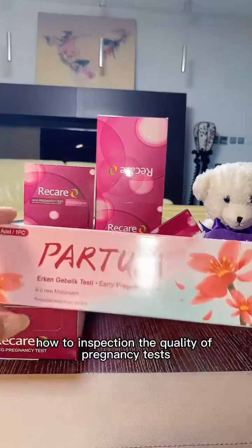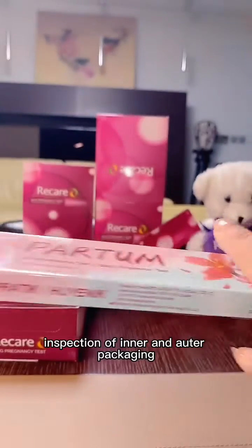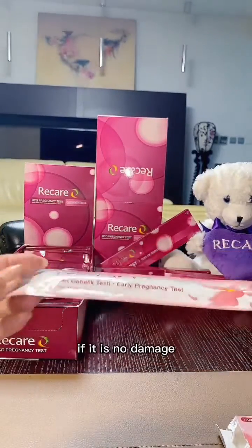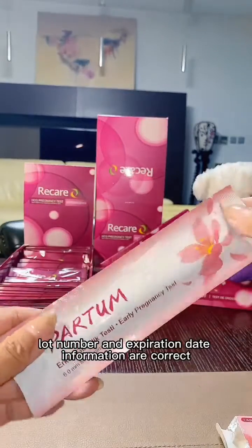How to check the quality of a pregnancy test. Step 1. Appearance inspection of inner and outer packaging. Look directly to see if the package is complete. Check that there is no damage, and that the lot number and expiry date information are correct.